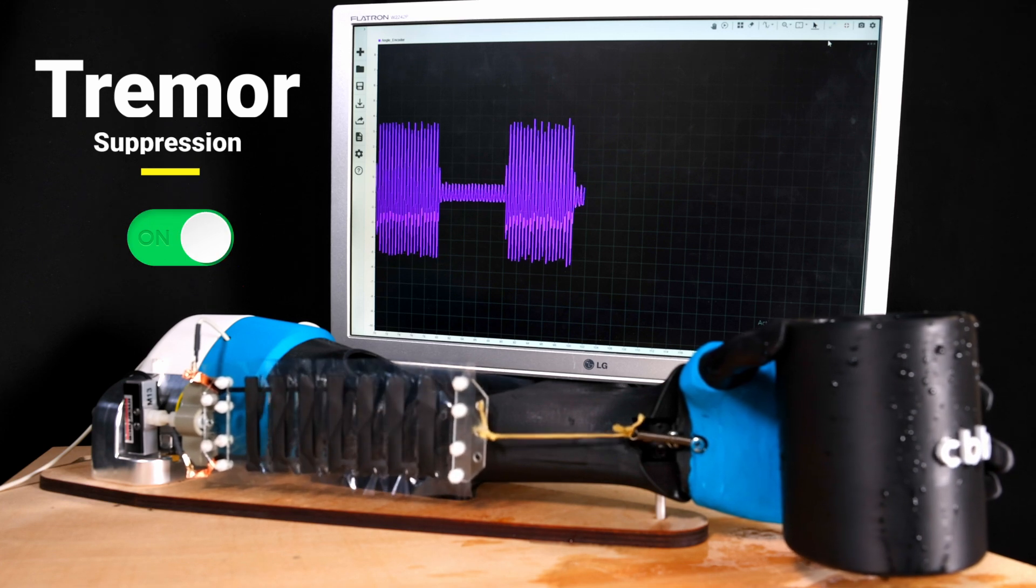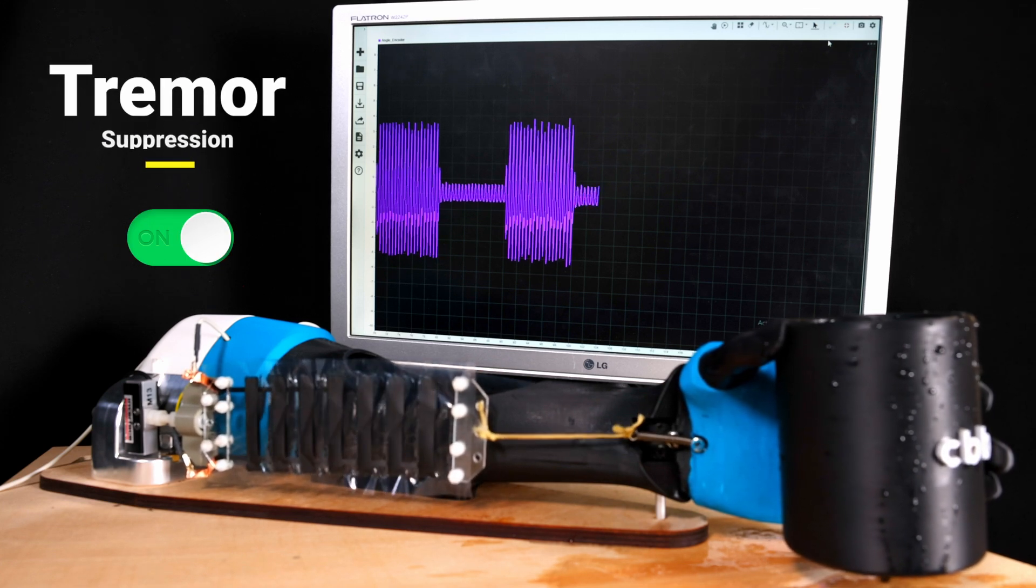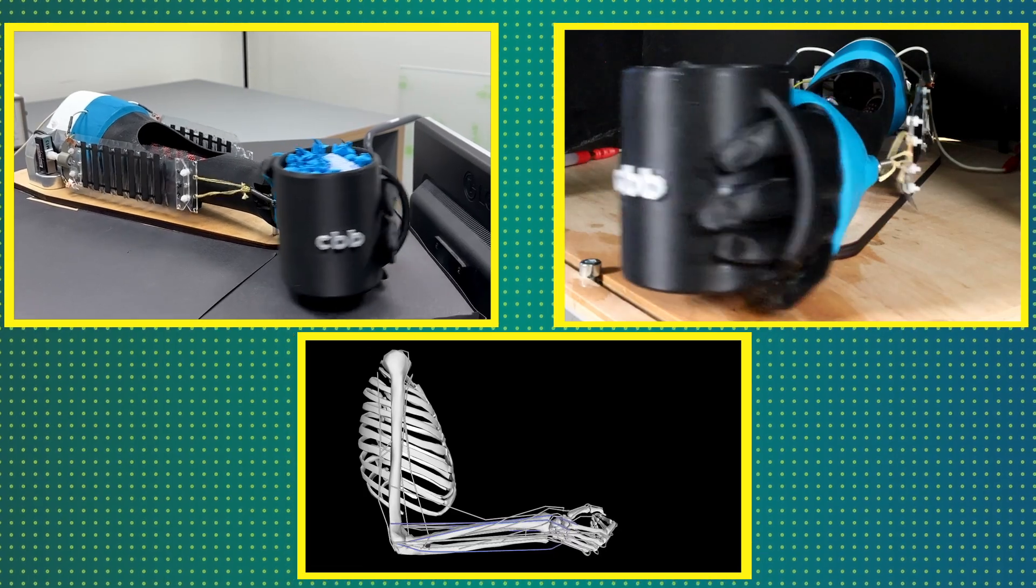The researchers see their robotic arm not only as a platform for other scientists in the field to test new ideas in exoskeleton technology.